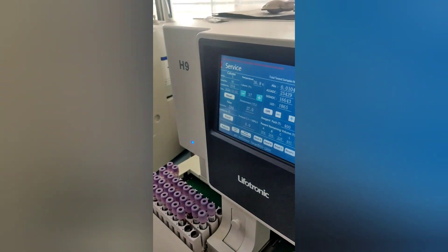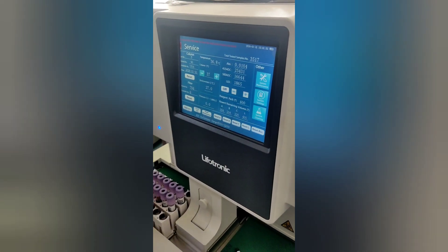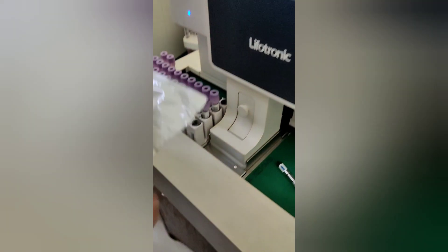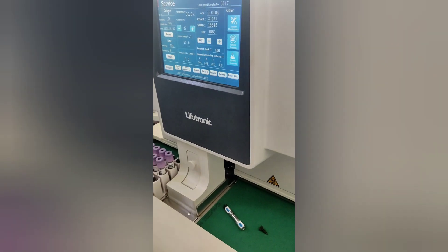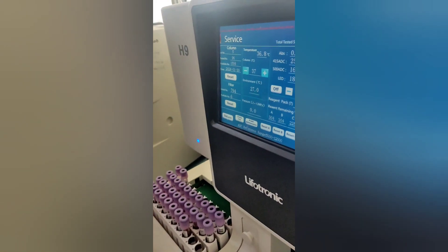After fixing the new column, close the cabinet and wait for a few minutes. Check the temperature, which should be 37 degrees Celsius.